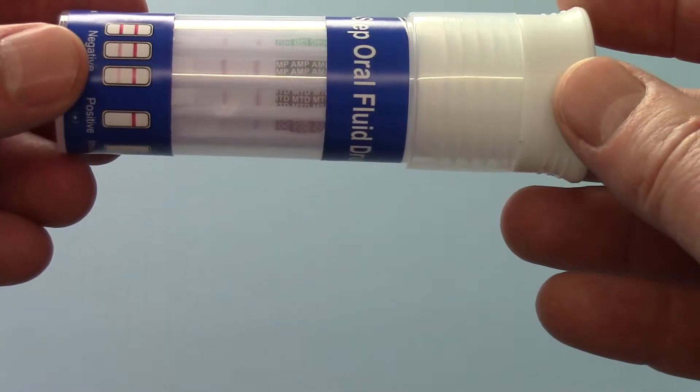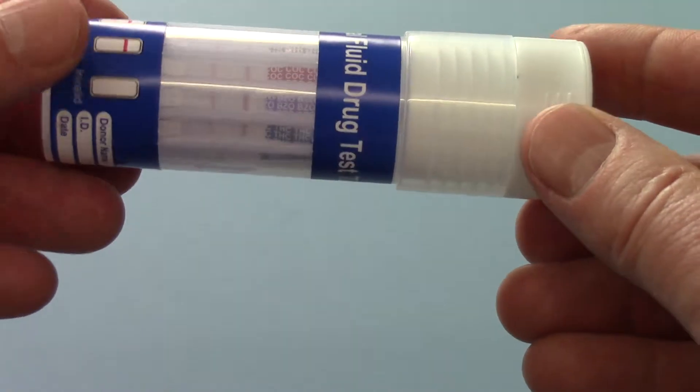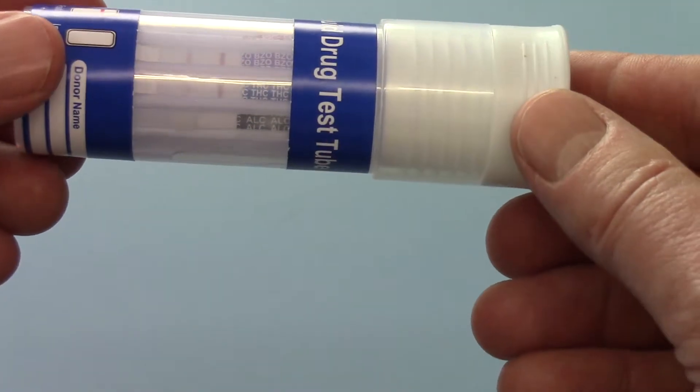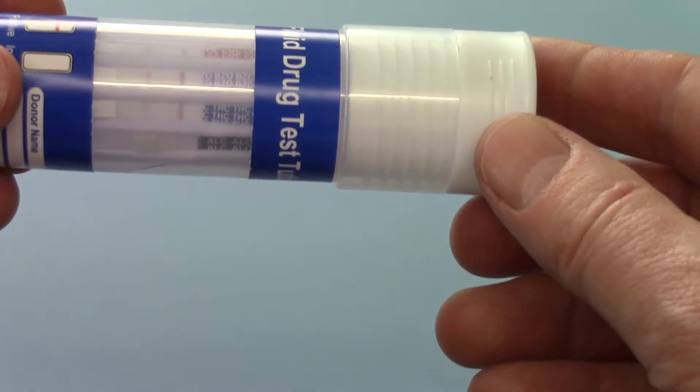Second strip negative, third strip negative, fourth strip negative, fifth strip negative and the sixth strip THC negative.